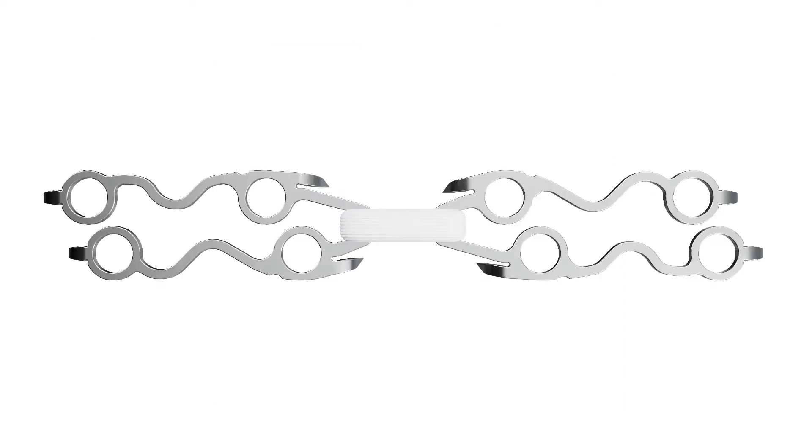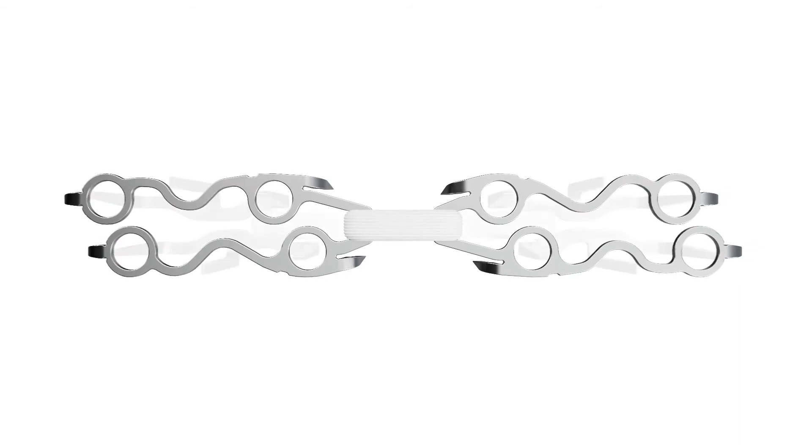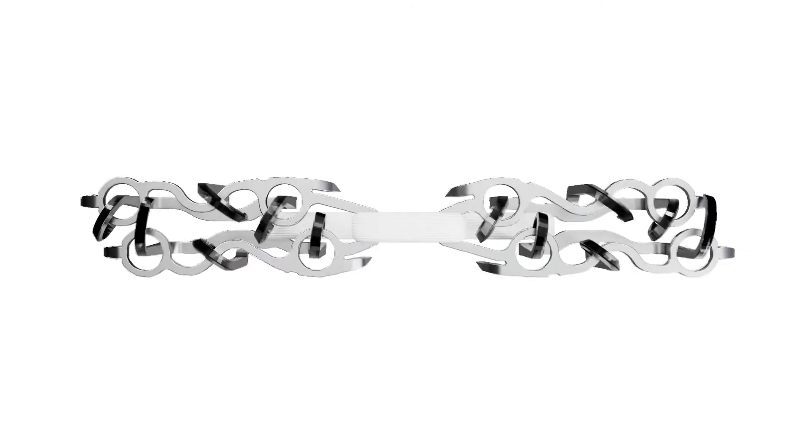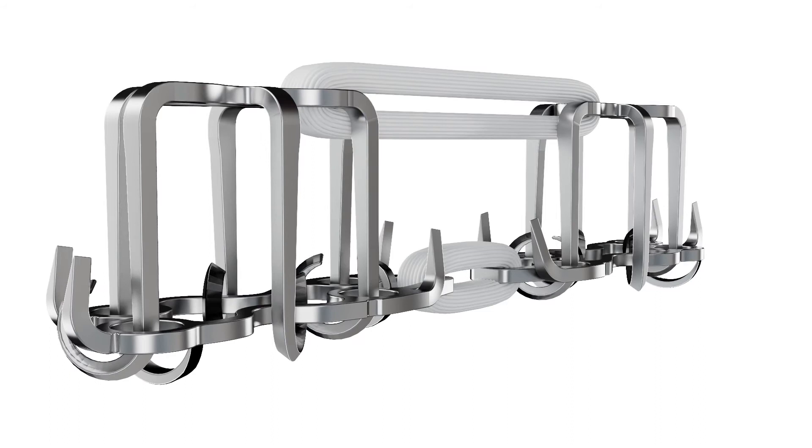Similar to the top component, the bottom component consists of two identical stainless steel anchors connected by yarn. The stainless steel pieces have four eyelets which are designed to engage the legs coming from the top component during implantation.